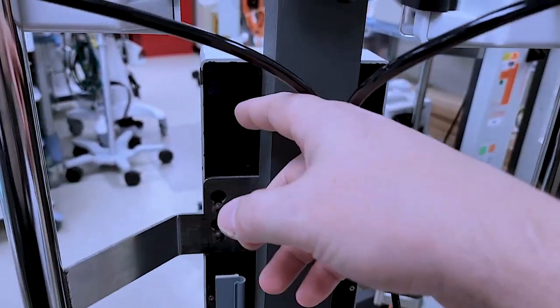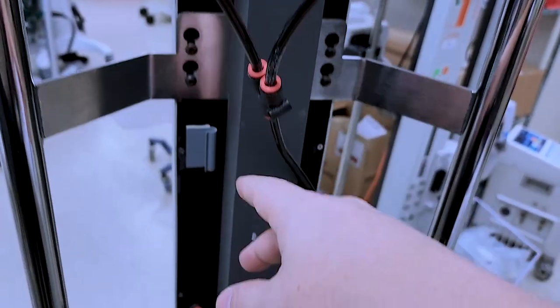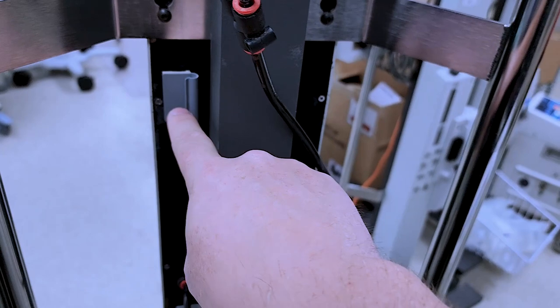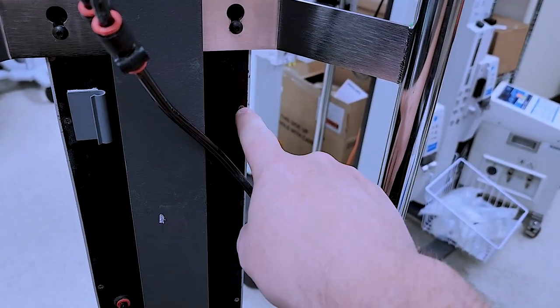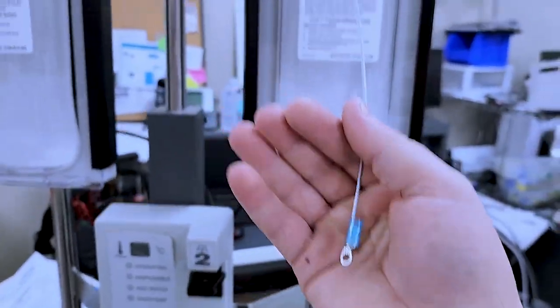While those ones are loosened up, next we're going to do is lift it up and then we're going to suspend it. While we're suspending it, we're going to take these two number one Phillips off. And then I've been given a very unique solution.